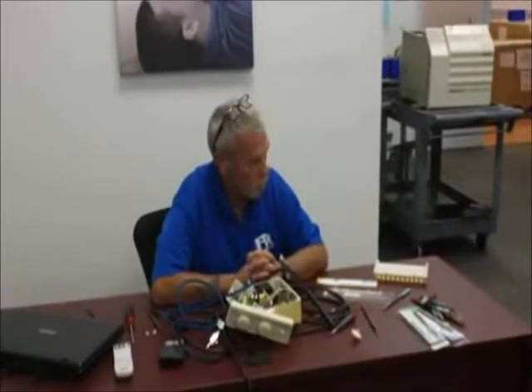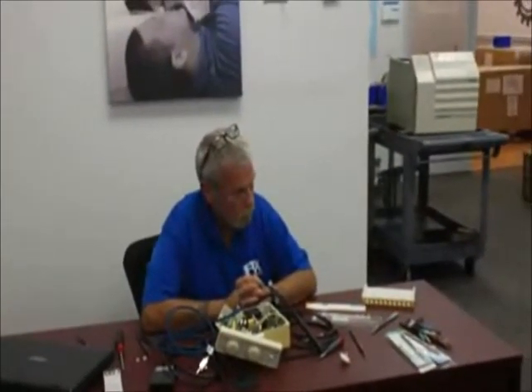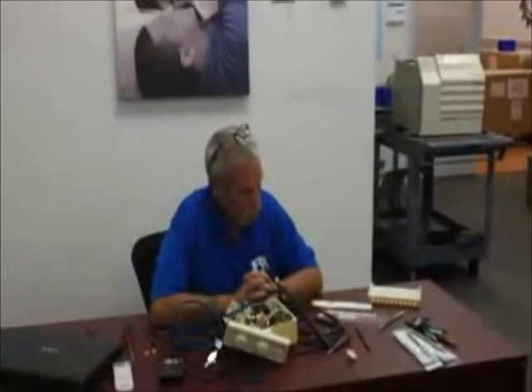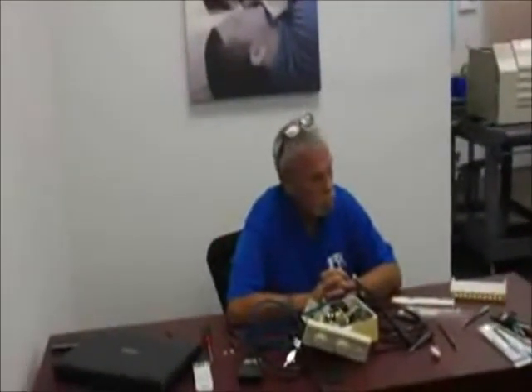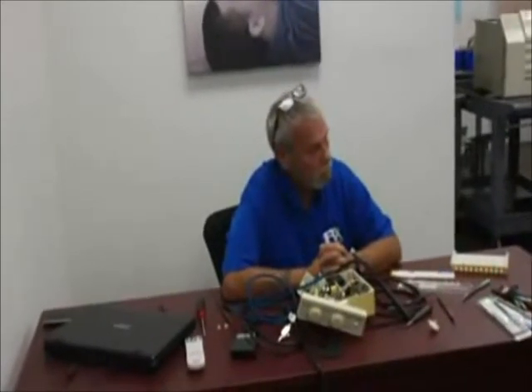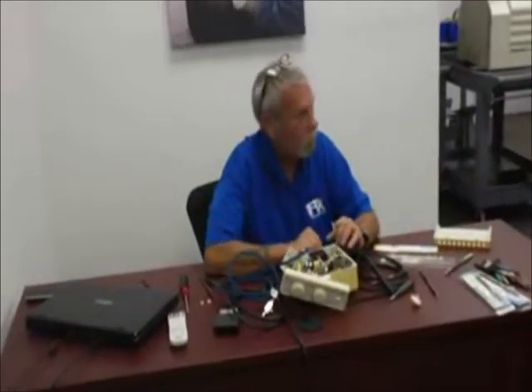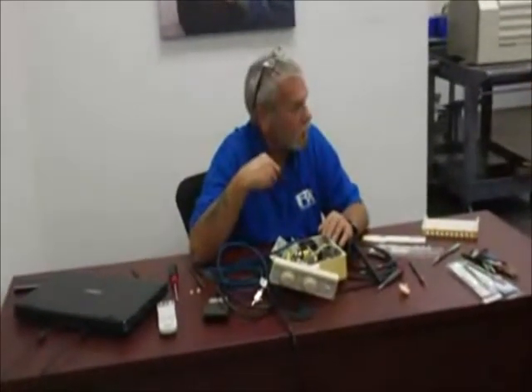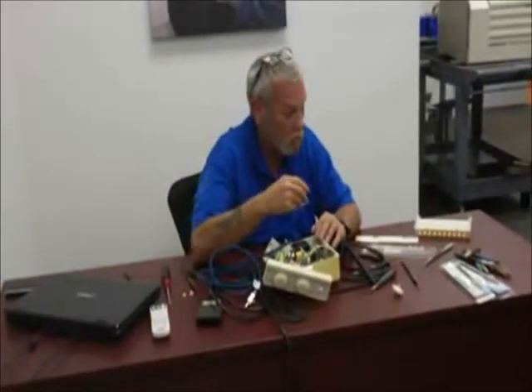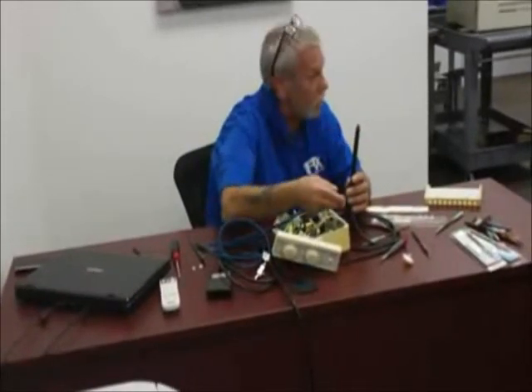Regarding brand differences: the parts from Chapman-Hoffman, DCI, or RPI are basically universal from brand to brand. Common components — solenoids, water lines, most handpiece cord assemblies — are going to be common. The exception is circuit boards, which are brand-specific. Most solenoids fit most scalers. You may need to adapt handpieces, and you must order the handpiece according to the kilohertz value of the scaler — 25K or 30K.